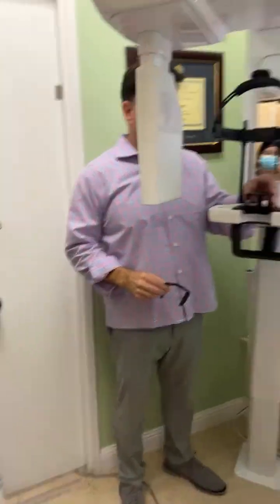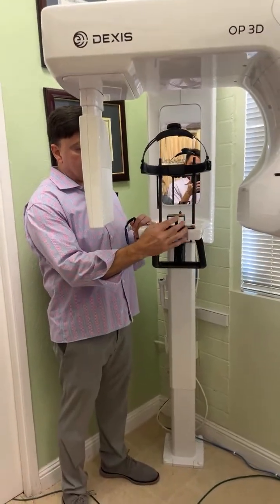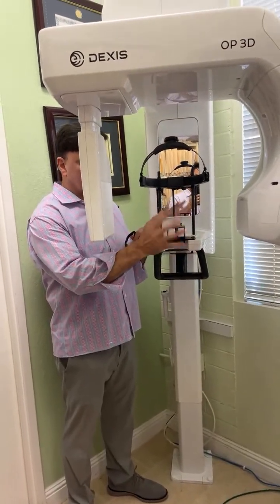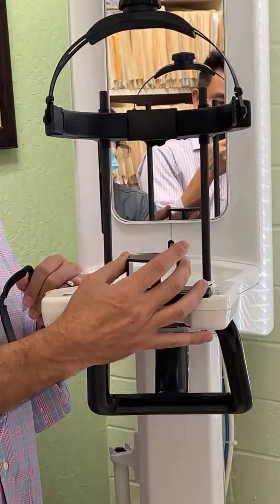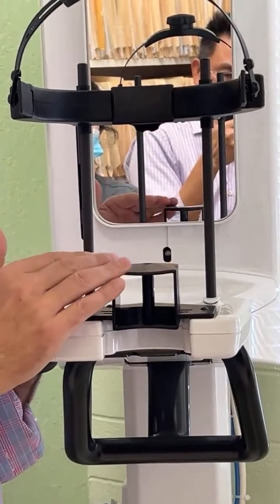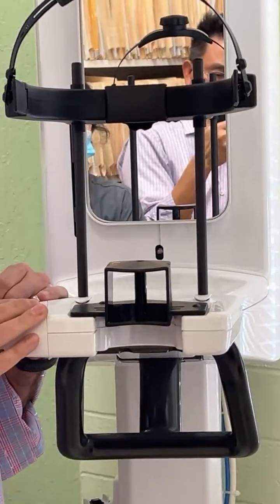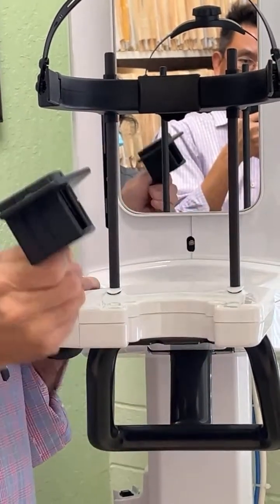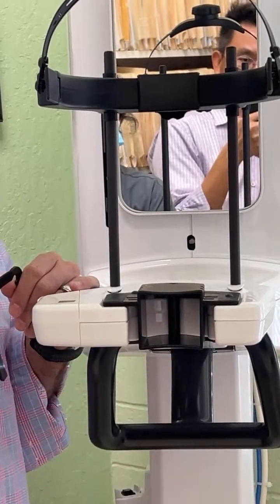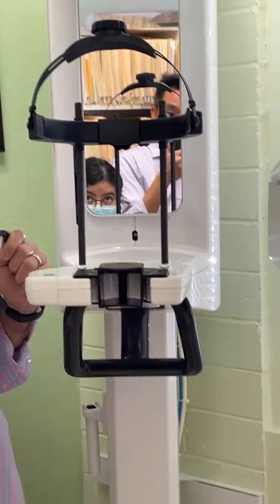This is the standard position. The bite, the chin support here is in this manner for panos, all the time in this position. For a CT of the mandible, in this position. For a CT of the upper and lower jaw, in this position. The only time you turn it over, there's a magnet that holds this in, is when you're in the maxilla on a CT. And look at the light up here, turn green.